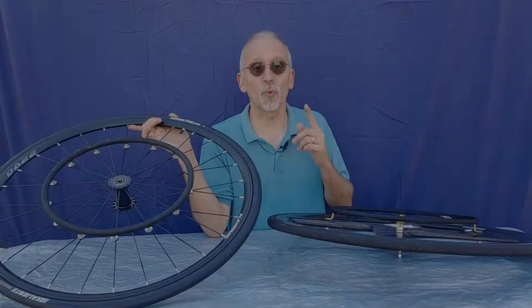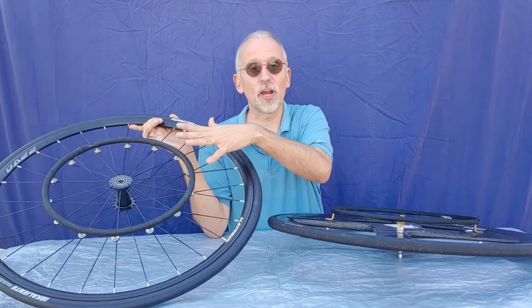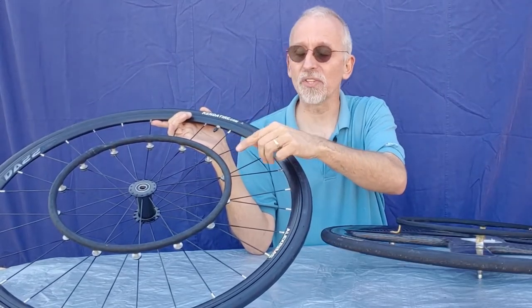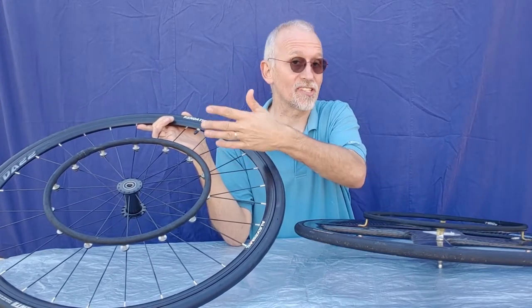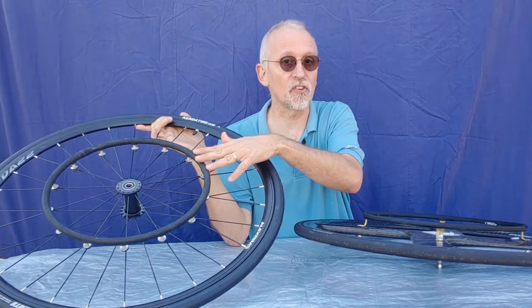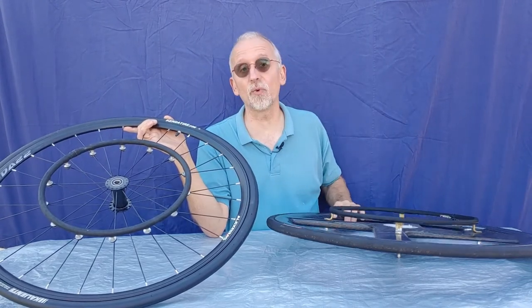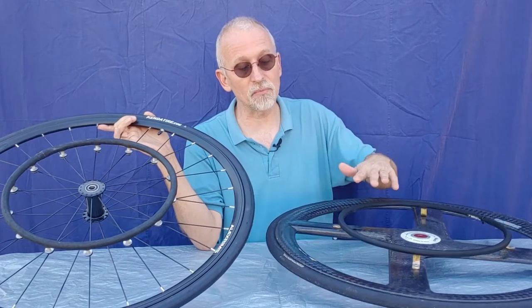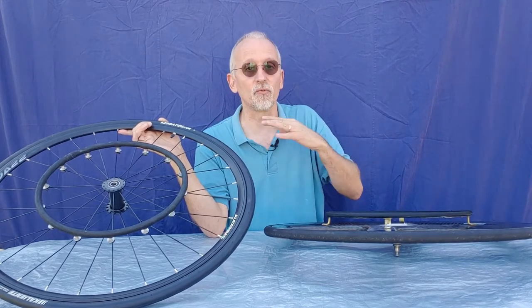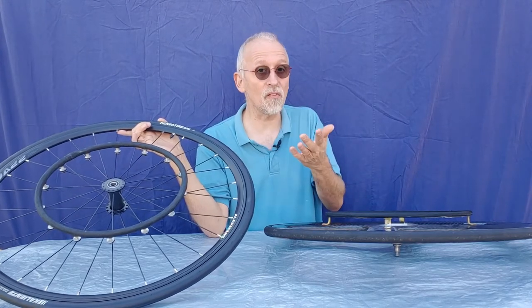This is Raymond Jones with Wheels of Fire Wheelchair Racing. Wheelchair racers use rubber coated rings attached to the rear wheels of their chair and special gloves to propel their chair forward. These hand rims or push rims have to be removed sometimes — perhaps you are changing the size, or you need to replace the rubber surface and reinstall it. There are a few tips and tricks you need to know depending upon the type of wheel you are working with. Different hand rims attach in different ways to different styles of wheel, and we are going to go over a few different styles so you can see how to more easily get the hand rim off and put it back on.